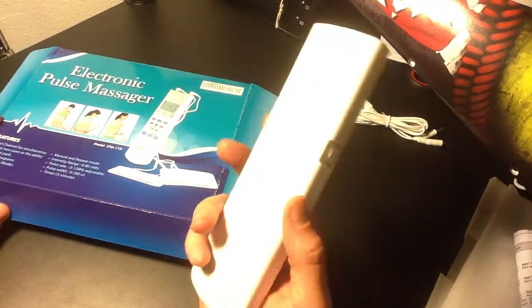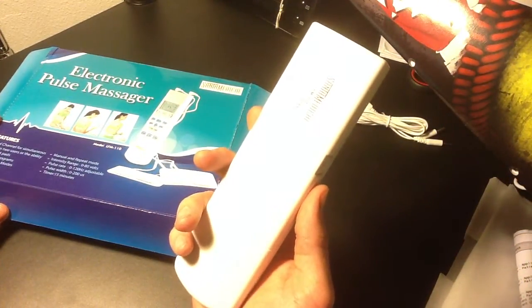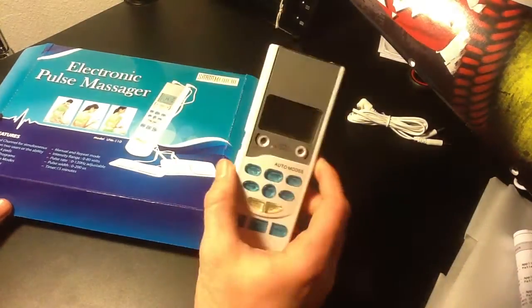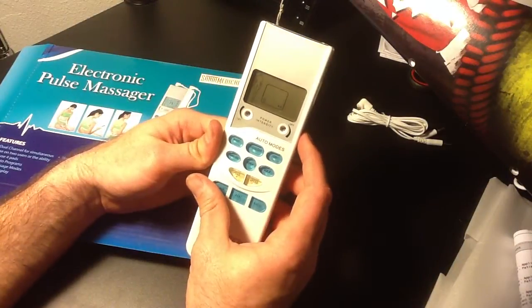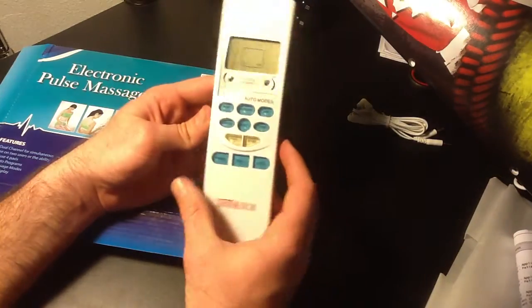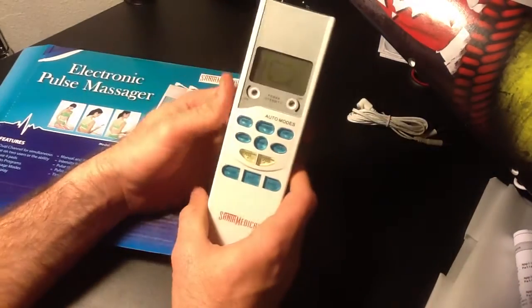The great thing about this one is obviously its price. And as an active, pretty tall and big guy, this is a powerful unit. This kicks my butt, or I should say my back. It's strong. It works well. It's not flimsy. It's not cheap.